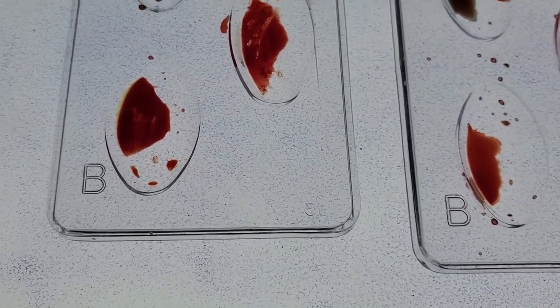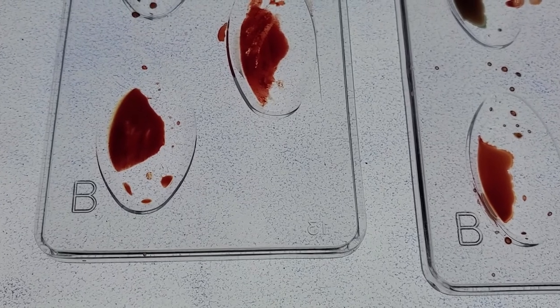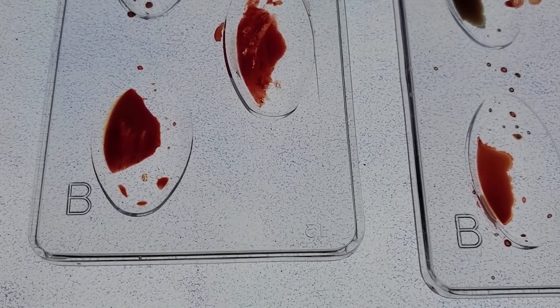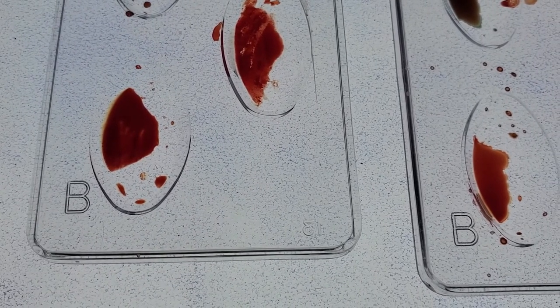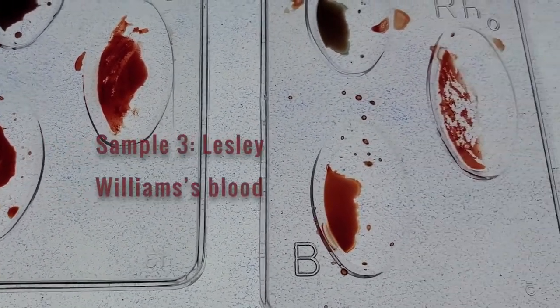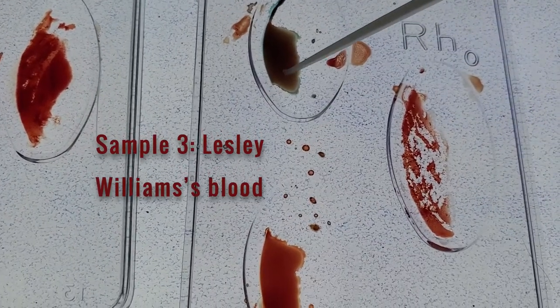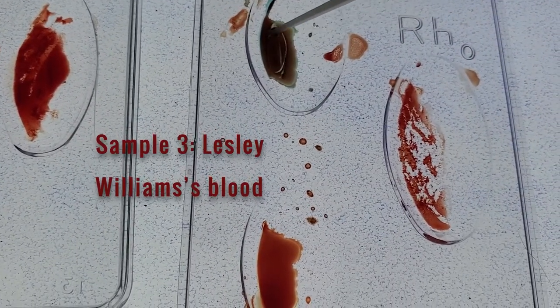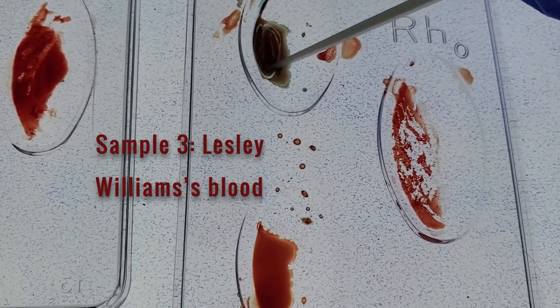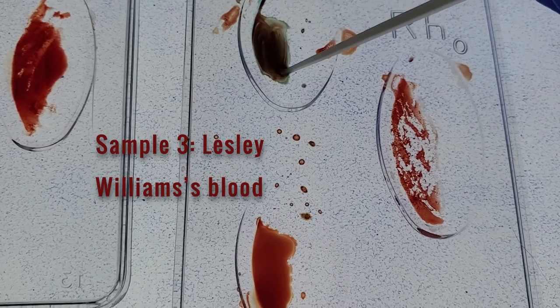In the last blood sample — which is actually the instructor's own — let's see if you can match the blood type with what you see in the video, since the instructor already revealed their blood type earlier.